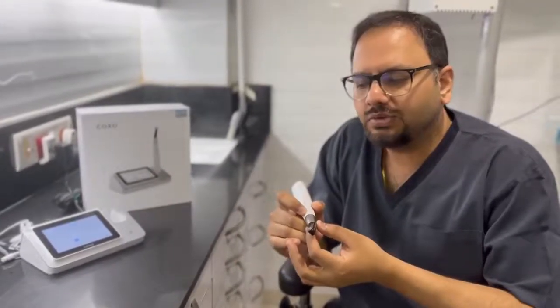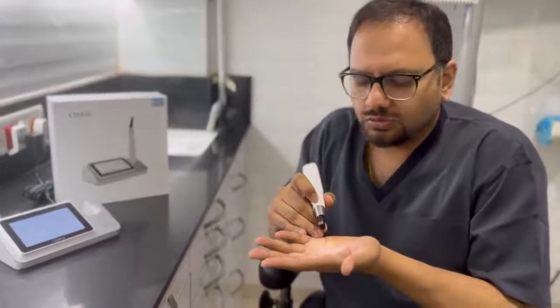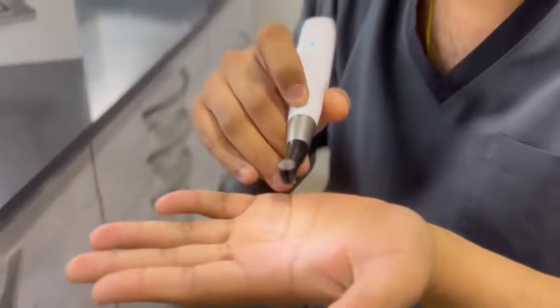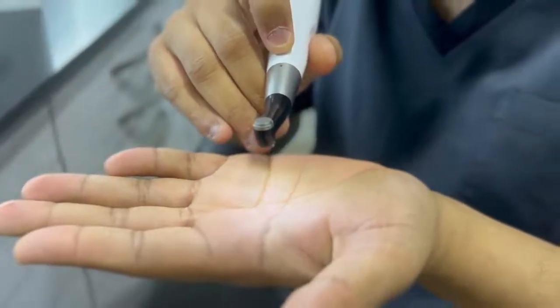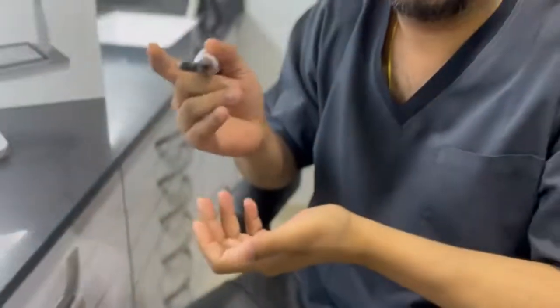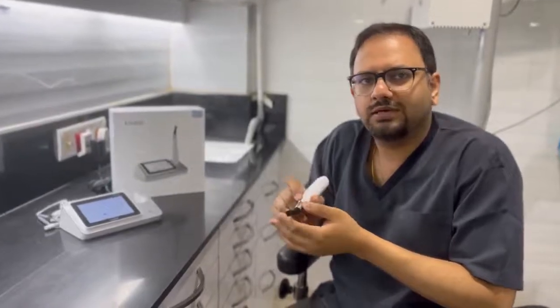The second unique feature of this is that it also has an inbuilt light. So those of my colleagues who are not using a microscope or those who are not using an inbuilt light with their loupes, they can take advantage of this light. So it provides better visibility on the tooth while root canal treatment is ongoing.